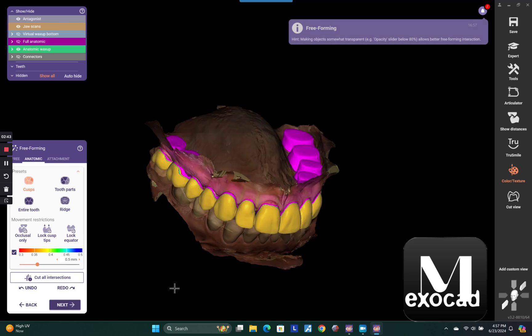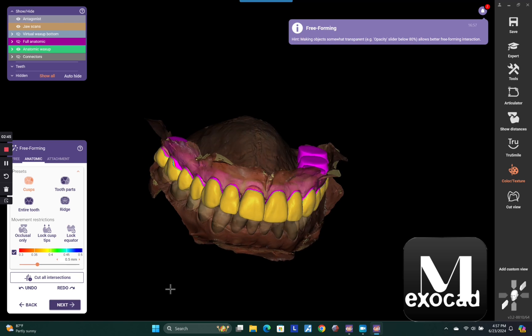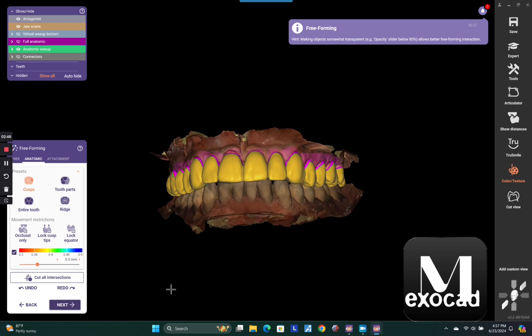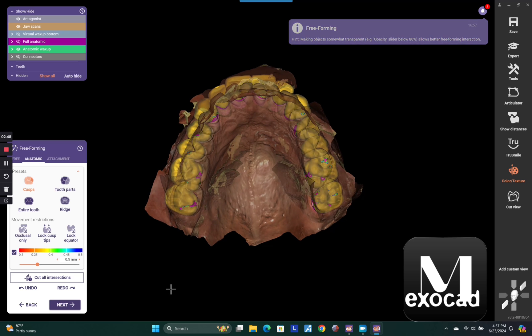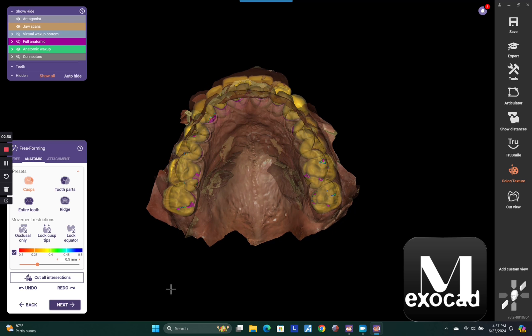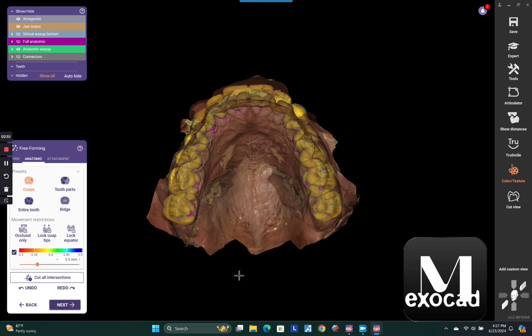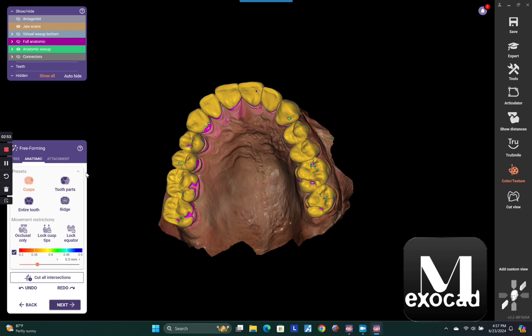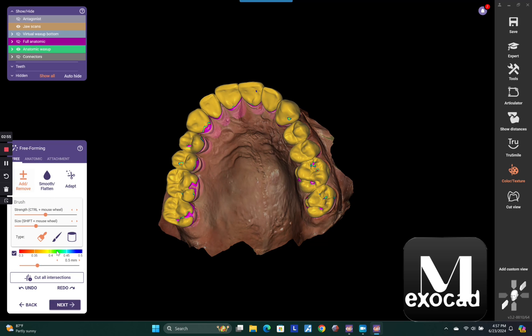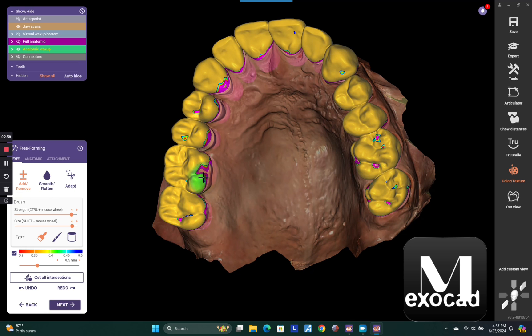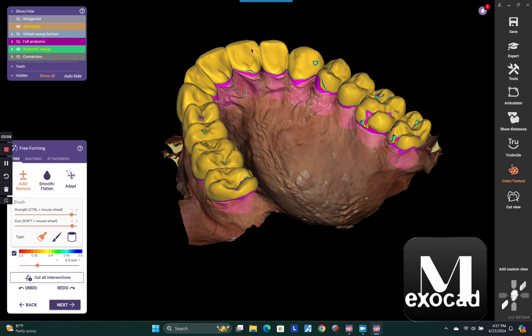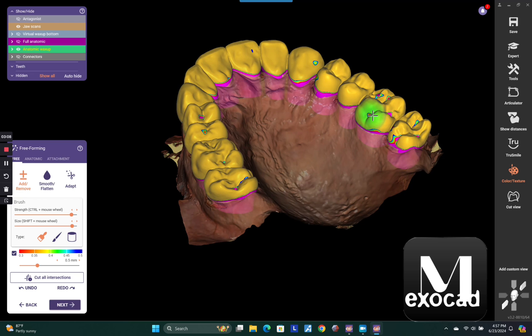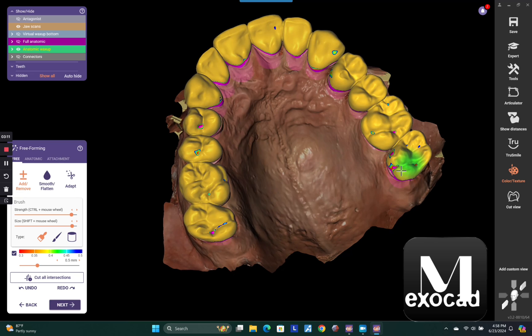In this step, you're looking at your original wax up that you did. Now you just want to make sure that your prepped teeth don't stick through it anywhere where perhaps you under reduced or maybe your margin was a little super gingival or something. So here I'm just going to my add tool and just making sure that I don't have any holes anywhere from my original wax up that I did, which was on the kind of pre-op model. So this is now a prep model.